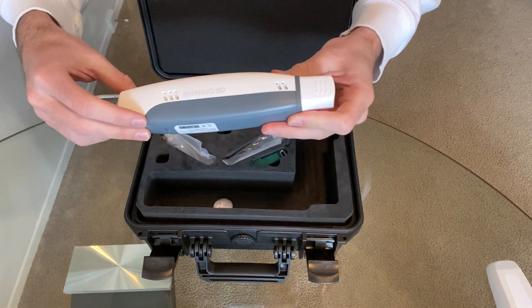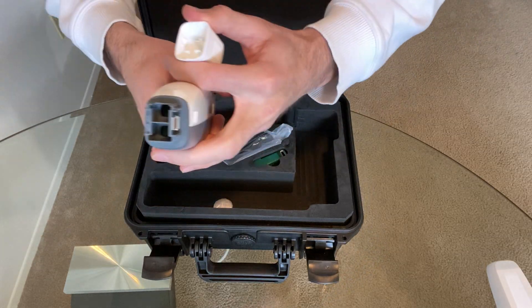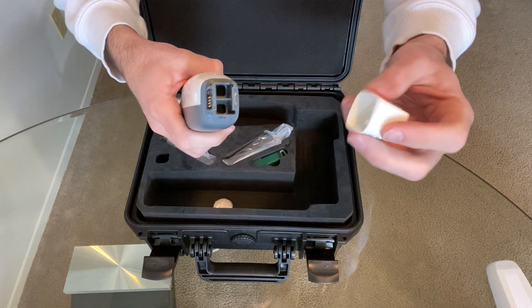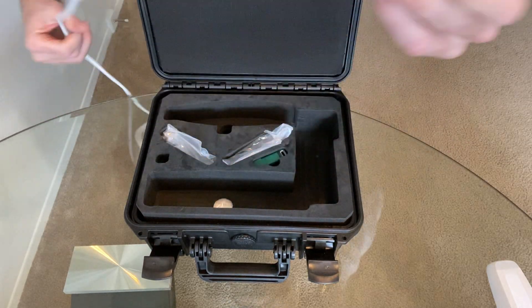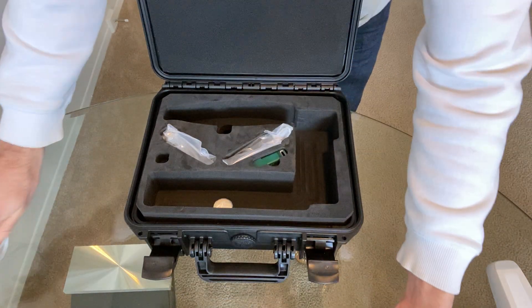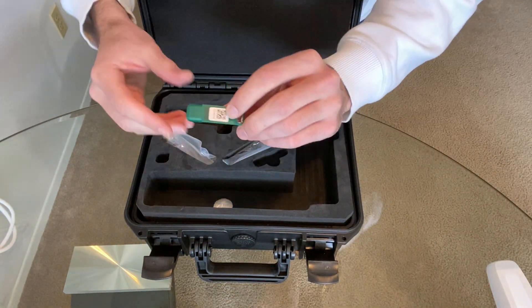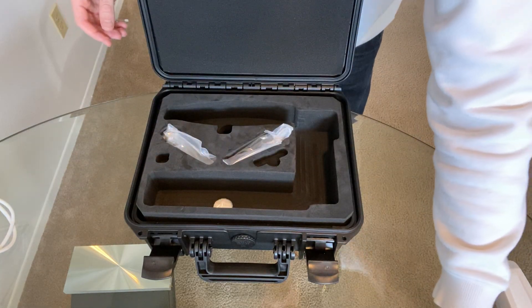So yeah, this is the Shining 3D intraoral scanner. There's a protective cap and then that's the camera itself right there. Be sure to not get any dust or watermarks on there — it will impact the image resolution. That is the intraoral scanner itself. We got the USB with all the software in there. It will need to be plugged into whatever workstation you're scanning on or using the software.